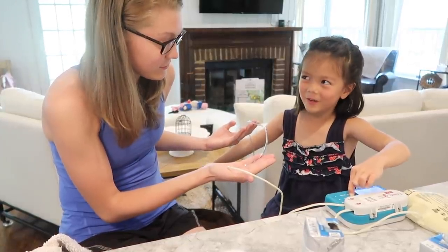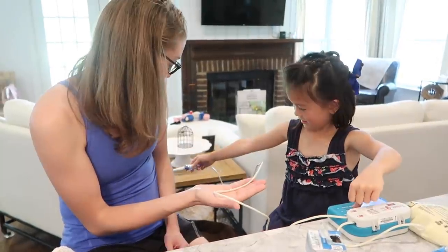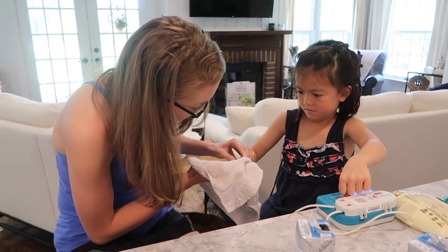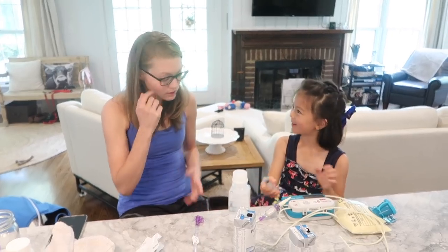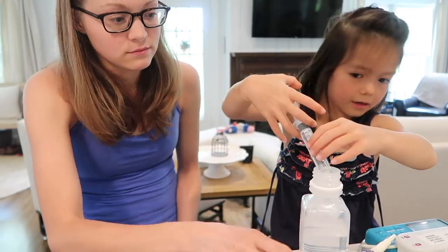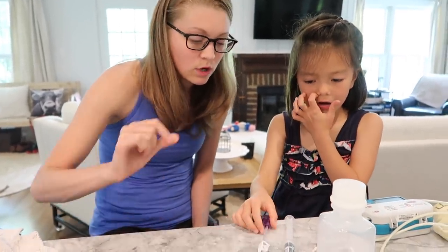Can I use a different finger? Oh yeah. I do that too. It's filling up the white part. Perfect. Now I do this part. Yes. Perfect, perfect. Now what do you do? Go ahead and prime this line with the water.